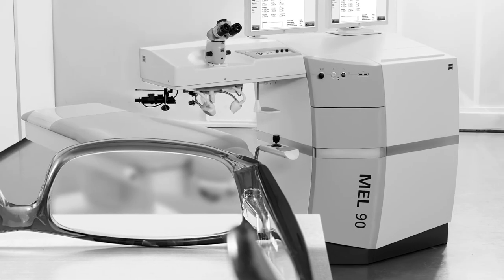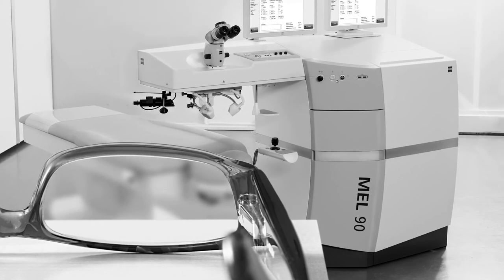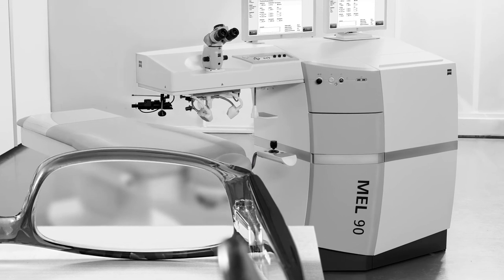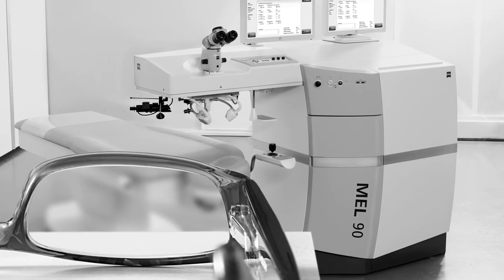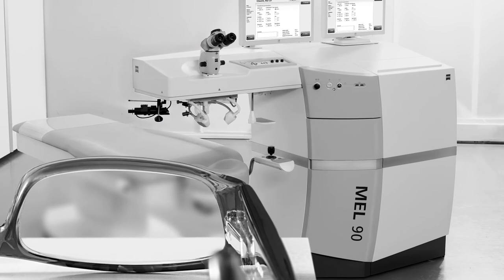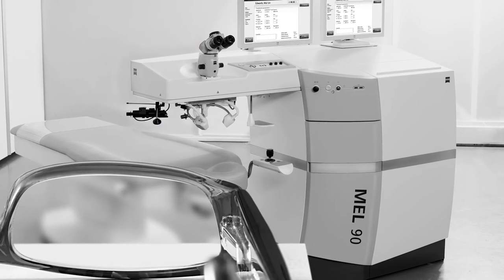What's more, Presbyond Laser Blended Vision is tolerated by far more patients than other presbyopia compensation approaches, by approximately 97% as compared to only 59-67% for conventional monovision.